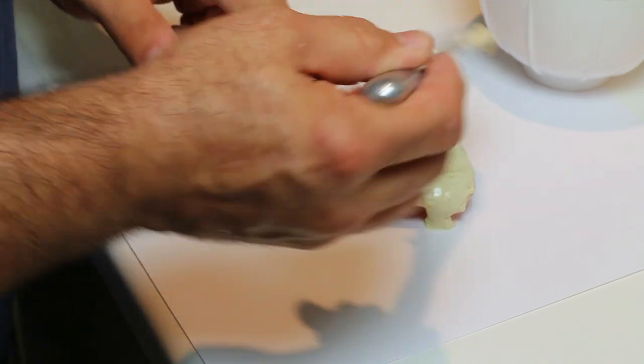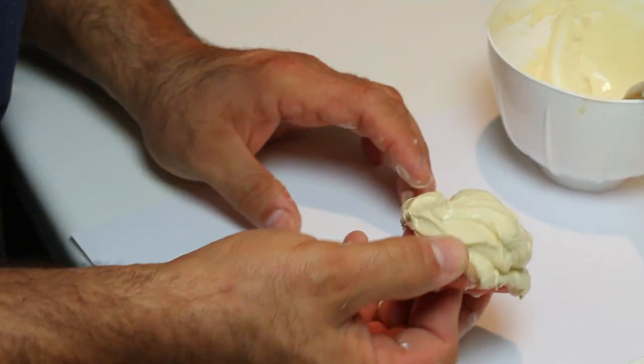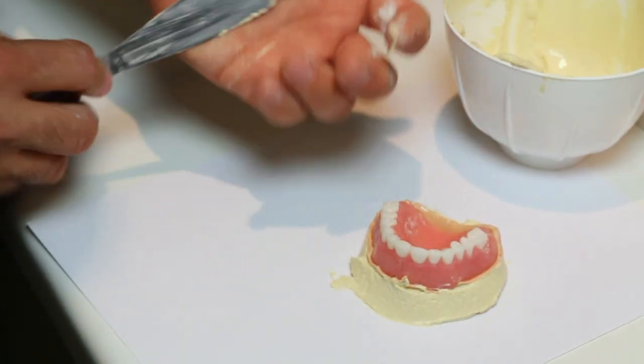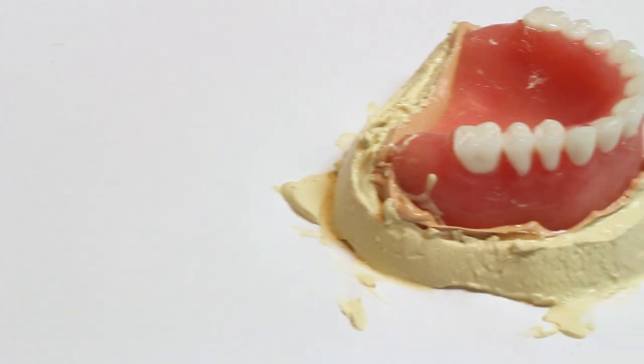This will stabilize the denture to withstand the rigors of the reline process and bring accuracy to all the denture extensions. Leave the stone in the denture and let it set.